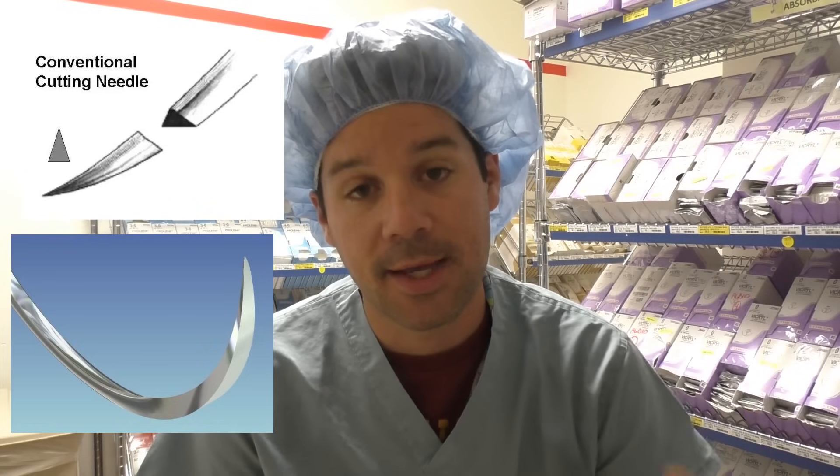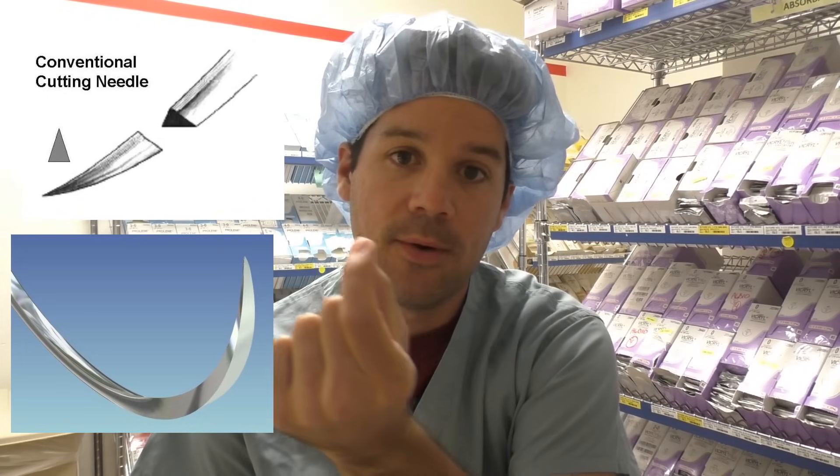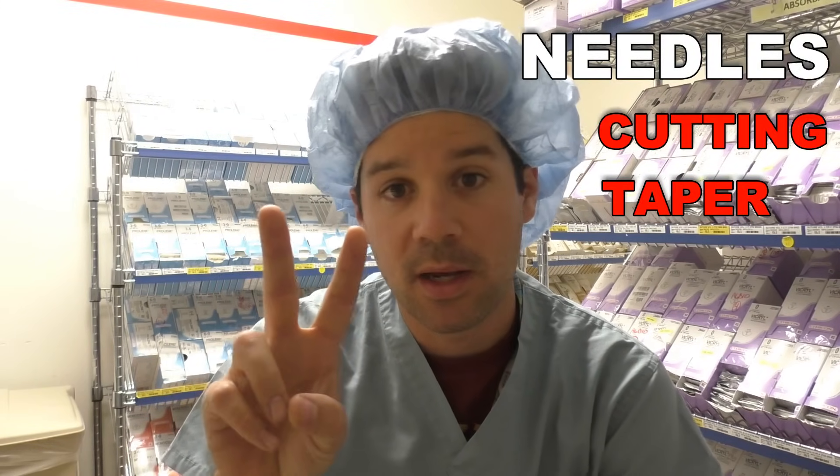When it comes to cutting needles, they cut because they do — they have a sharp tip and as the needle goes back off the tip it's actually bladed as it goes down the needle. That's used for cutting into tissue that is really tough. Out in the field you'll recognize the 4-0 monocryl PS2 — that PS2 is a reverse cutting needle used for closing the skin. That subcuticular layer right below your skin is really tough tissue and you need a cutting needle to cut through it and bring it all the way around to close up the incision. Two needle categories: taper and cutting.